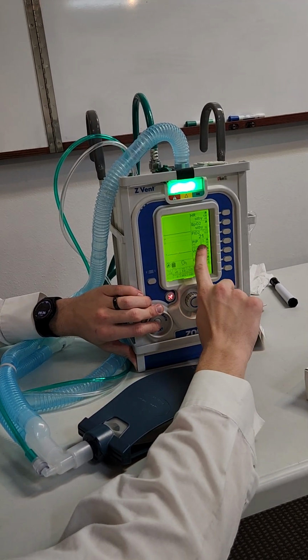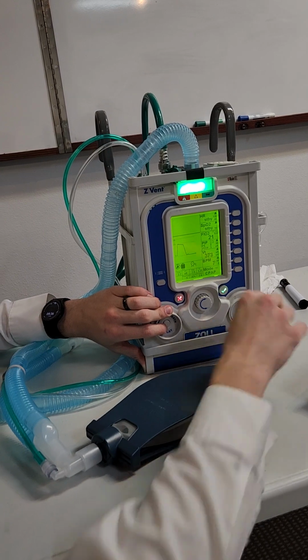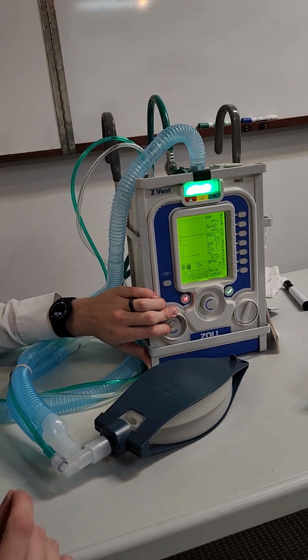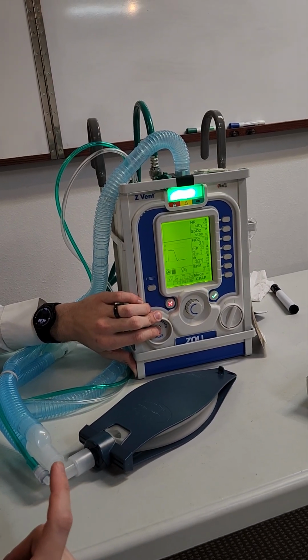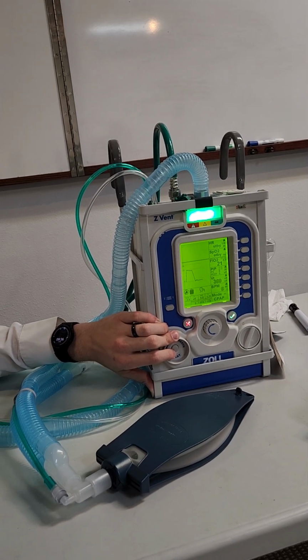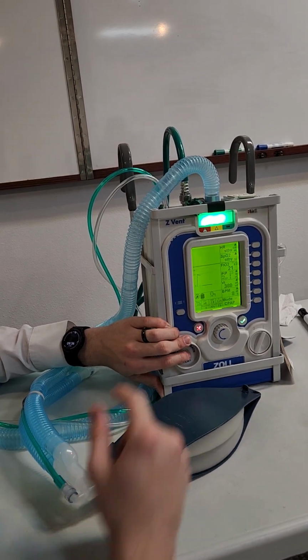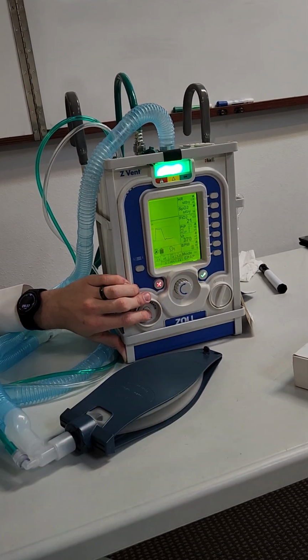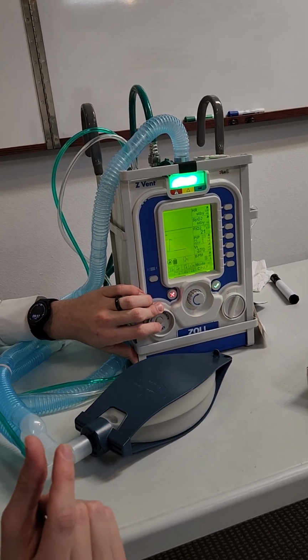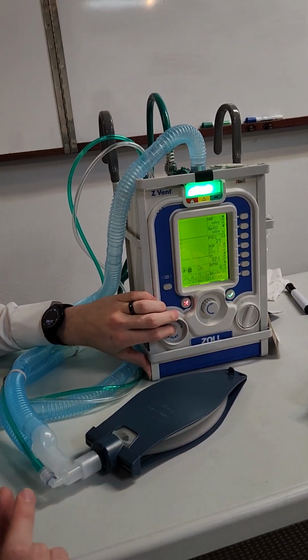The next box here we have, it says PIP, pressure support, and PEEP. So pressure support and PEEP is exactly as you would have seen on the Newport. So PEEP plus the pressure support will give you the IPAP, the inspiratory pressure. So this is just the way the CPAP works. Above that, the PIP, the peak inspiratory pressure right here. And you can see it's clear. It's like open. It's just the outline of 23. So if it's an outline number, that is something that is being measured. If it's a dark number, like FiO2, that is something you can set.